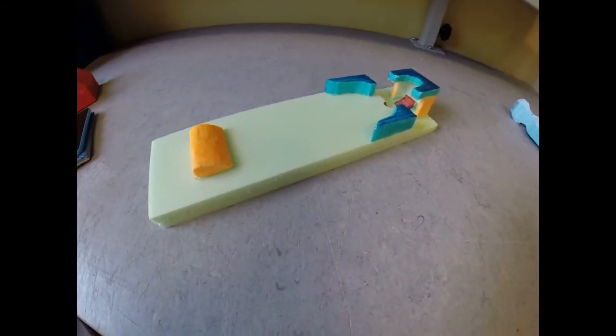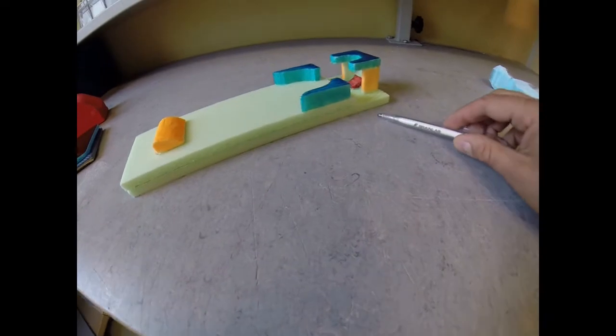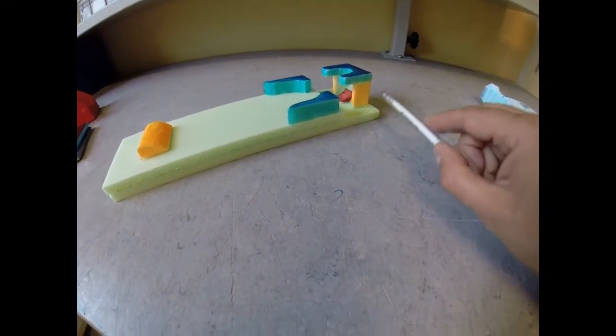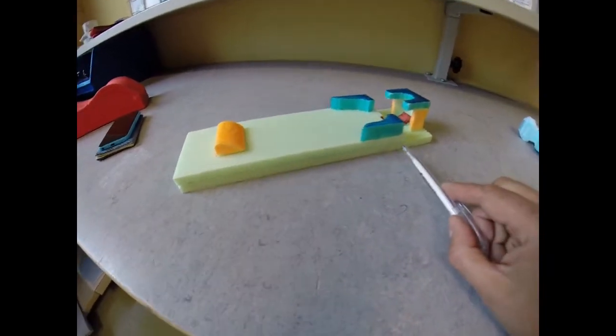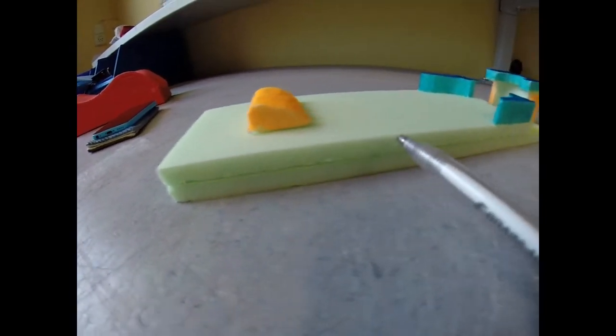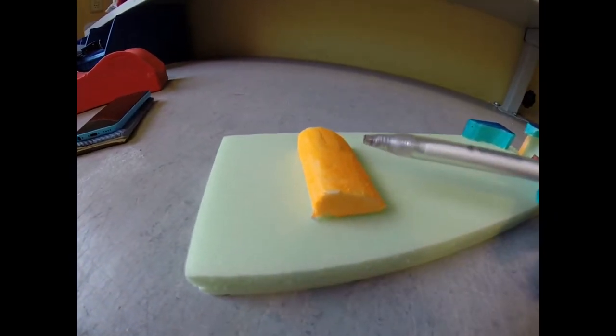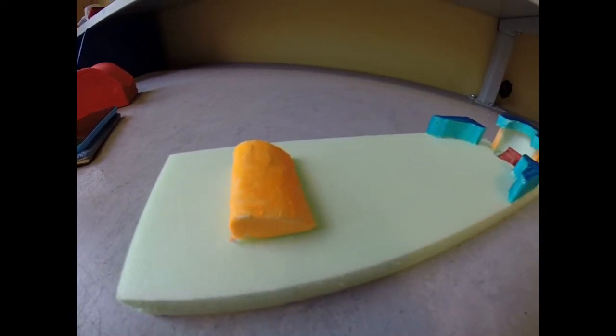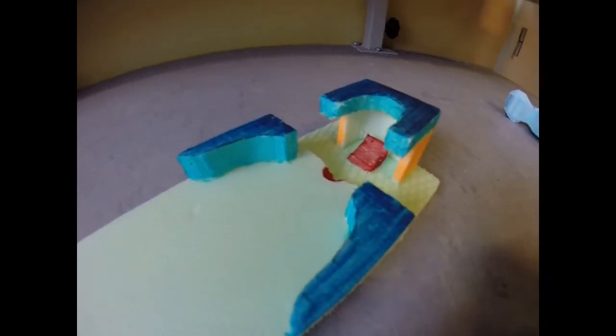They made it all out of polystyrene - two big parts of polystyrene, five centimeters thick each, they were glued together. This is the least important part, this is the support for the feet, and this is where it comes more important.